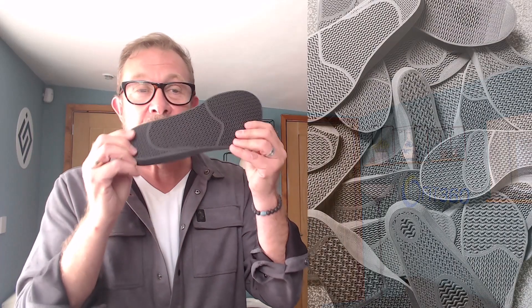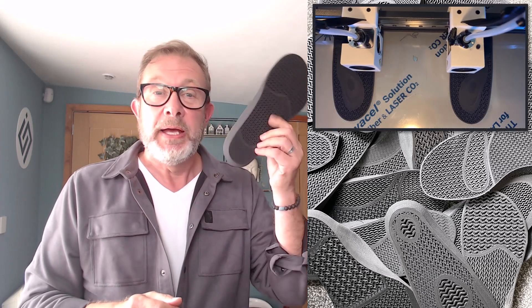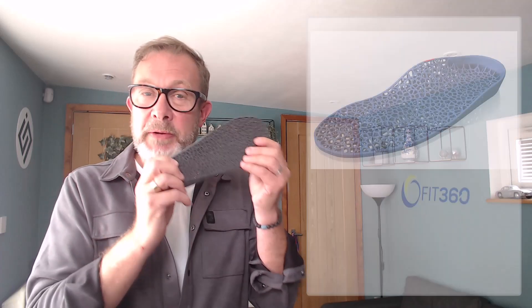We've also considered TPU and soft materials. This is an emerging area of 3D printing where price performance is still very much up for grabs — no one quite knows where this is going to go, so we decided to cover all bases. We've developed tools for FDM, enabling us to create zones and transfer those zones out as solids into slices to be used as density zones in the FDM/FFF process. Using great materials like ColorFab, you can produce really good results at a very good price performance. People are also interested in what they can do with both powder and resin materials.